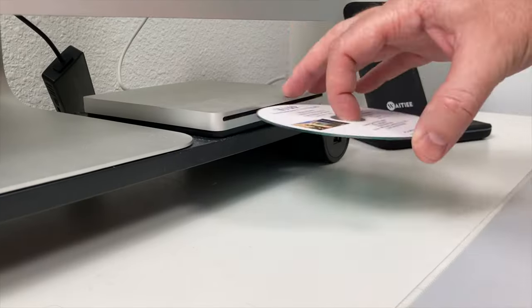To do so, I have a disk of images. This happens to be an MRI that my dad got and shared with me. So no patient information being shared here. But all I have to do is take that image from an imaging center, right? Medical radiologist. And if I were to open this up on a PC, there's an auto-run application that's Windows only, but I'm not going to use it. I'm going to use Mac software to open the images on this file. So let's pop in the disk.